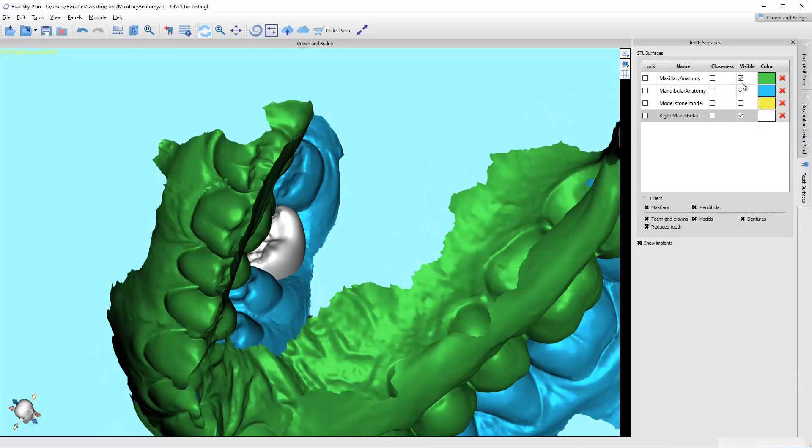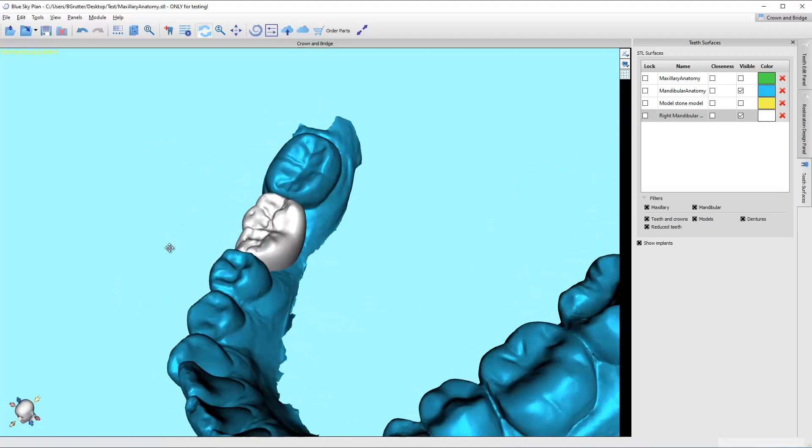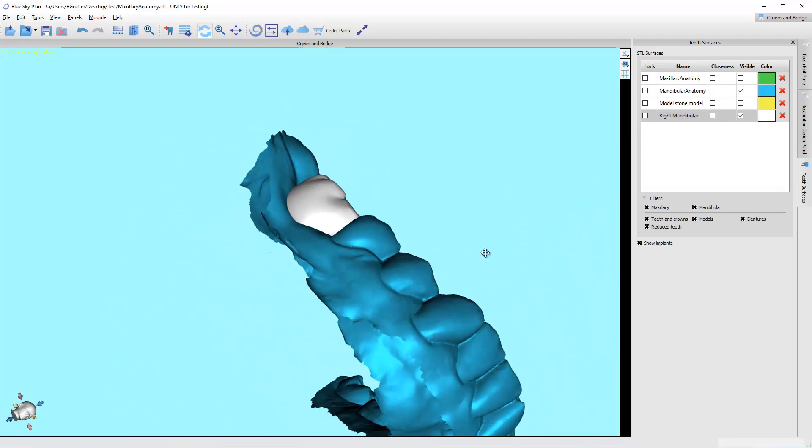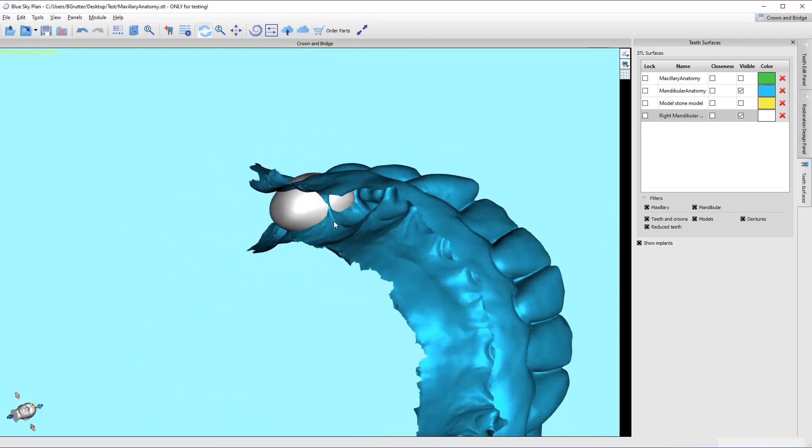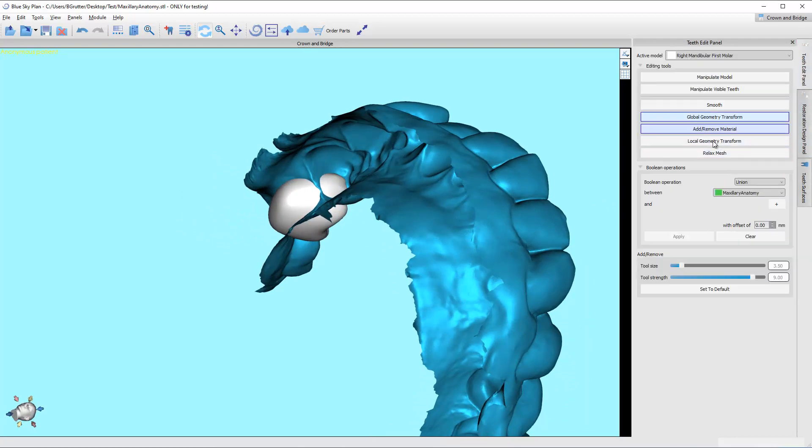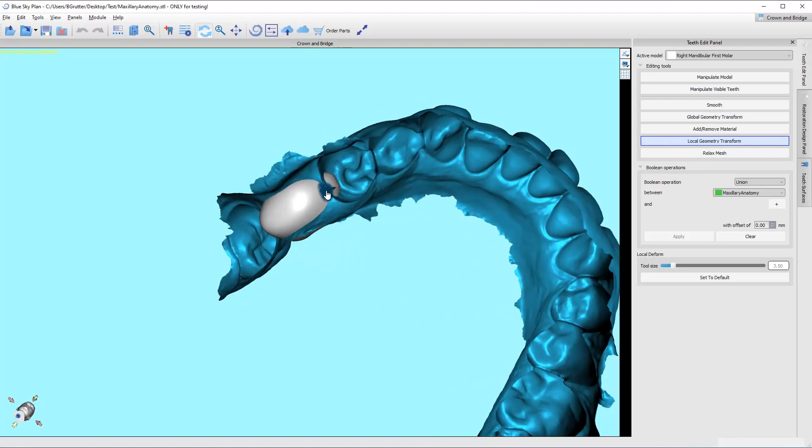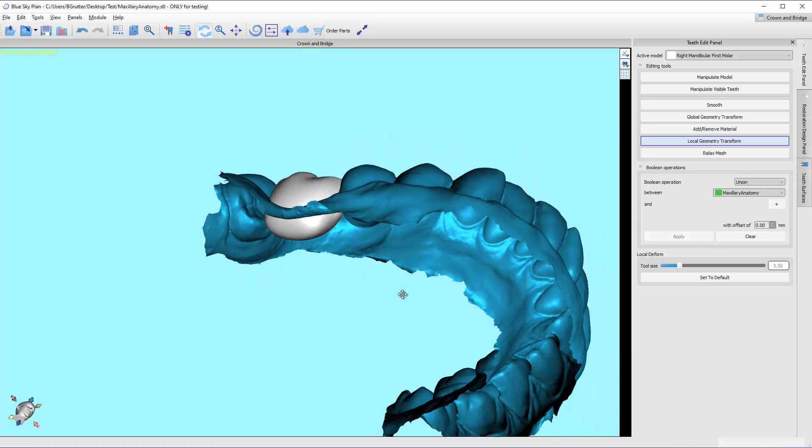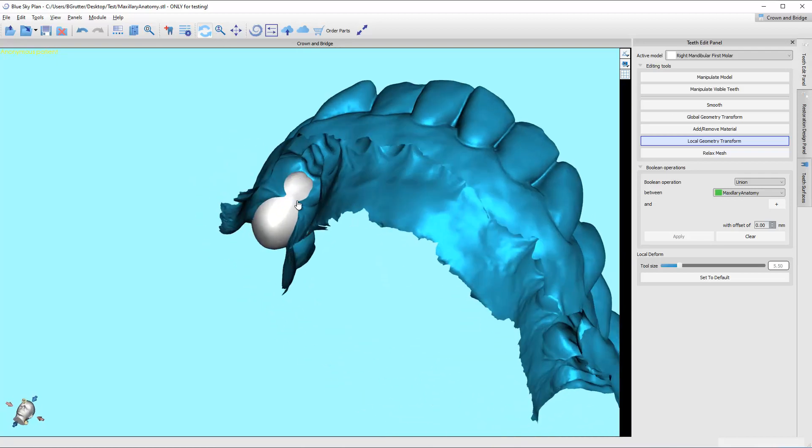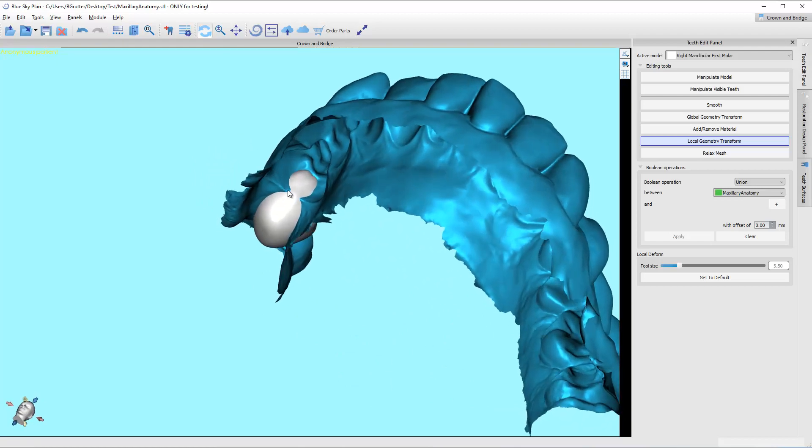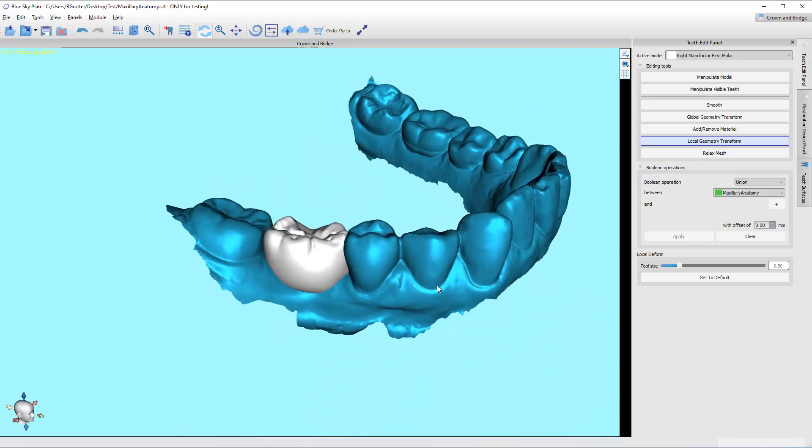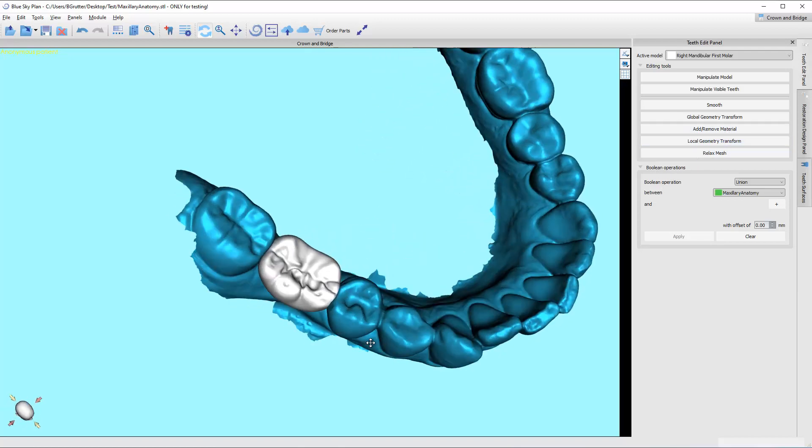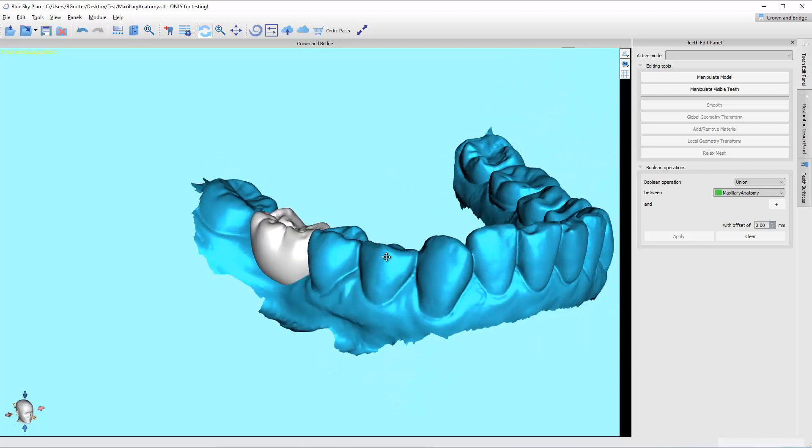I think we've pretty much concluded what we need to do as far as positioning that, scaling it, making sure the embrasures are closed. And actually, I didn't complete it. Me trying to show you what to do, and this is one more tool. I can actually grab an area and pull it. So I got rid of those embrasures. Notice these little jets in here. The more you get rid of those, the easier your life will be moving forward.